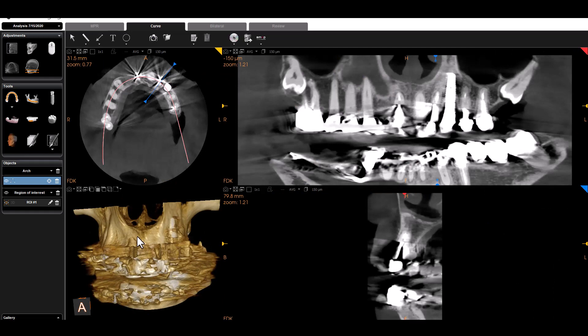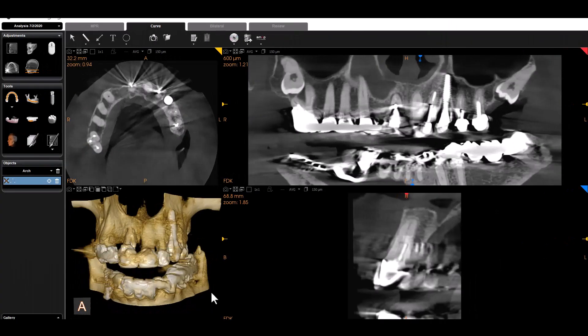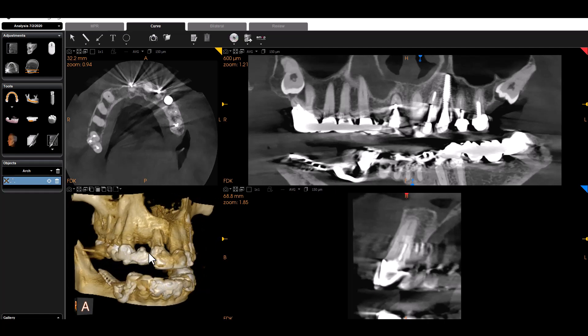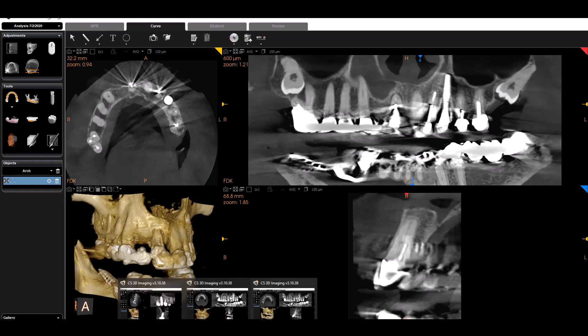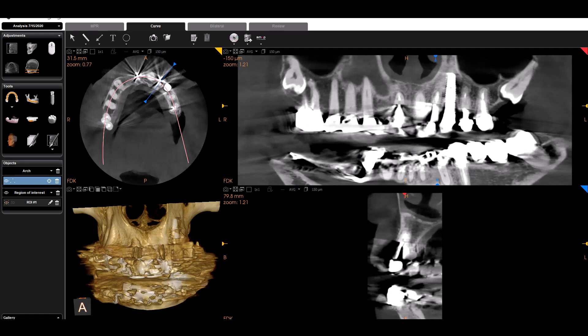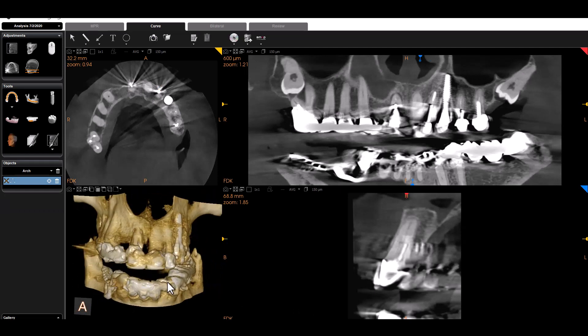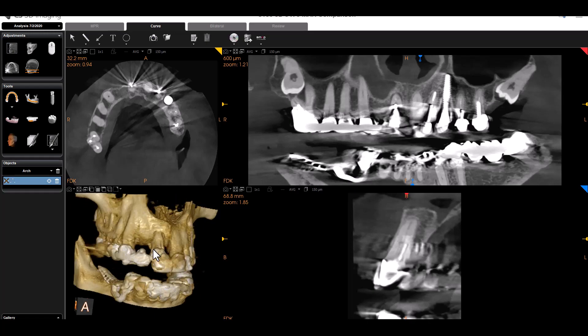I've separated the two cases — the original CBCT and the MAR CBCT. This is the original. When we ran the MAR, that 3D rendering looks like this now. The original CBCT was this, we ran the MAR algorithm, and the 3D rendering becomes much, much more helpful. Also, if you do guided surgery, your ability to merge an STL file with the CBCT is going to be impossible with the way it looked previously. But now you can actually accurately pick points and merge — or have it automatically merge, depending on which software you're using. There are a lot of nice advantages to having it get cleaned up like so.